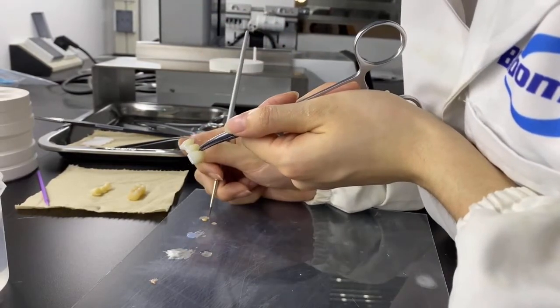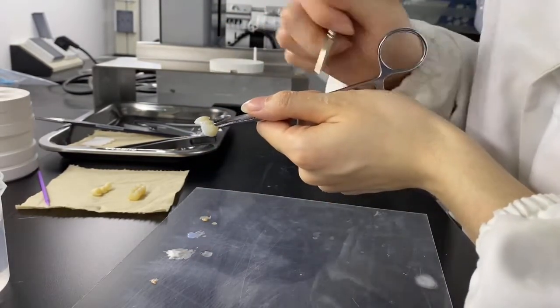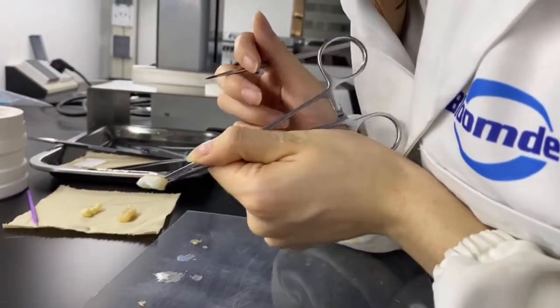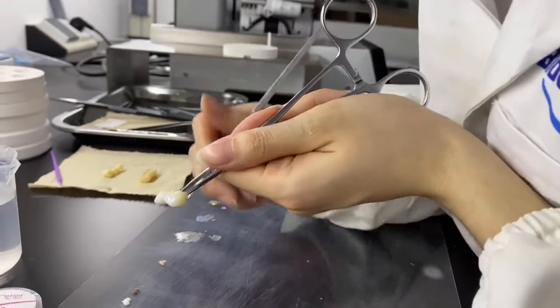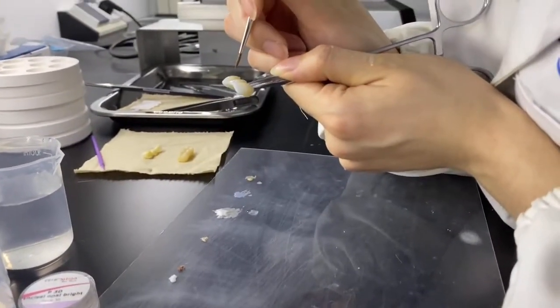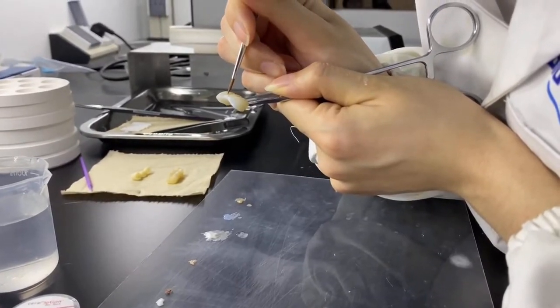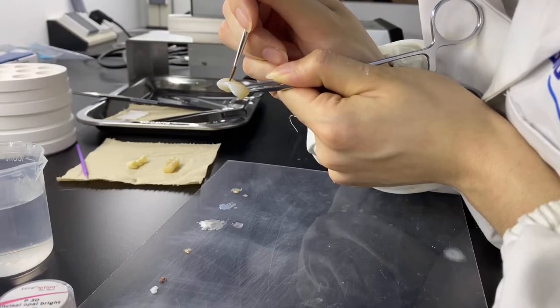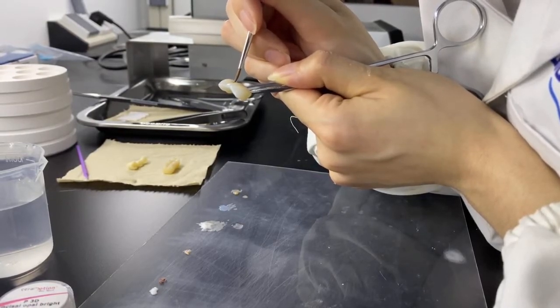The flexural strength of this new material is 650 to 1100 MPa and has fracture resistance. These conveniences have made the 3D Pro multi-layer zirconia more popular for crowns and bridges in lateral applications.